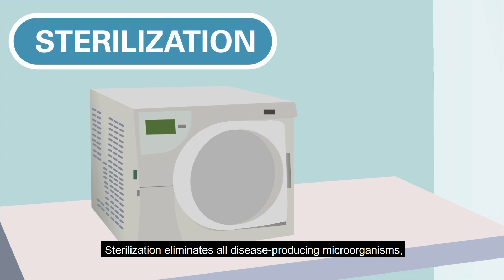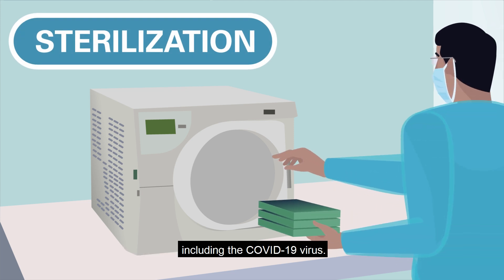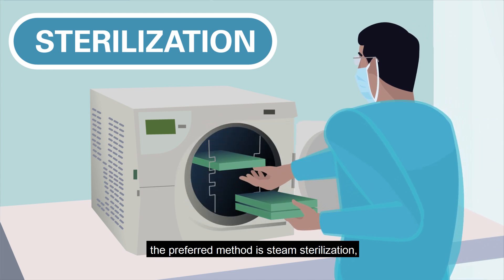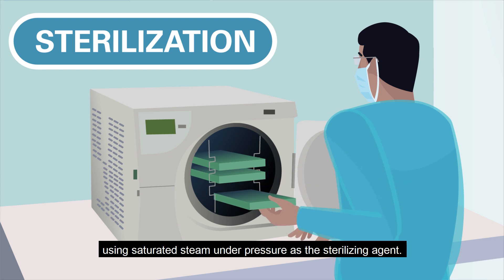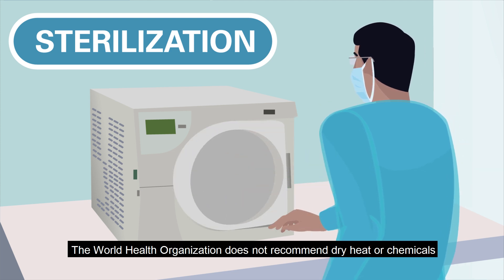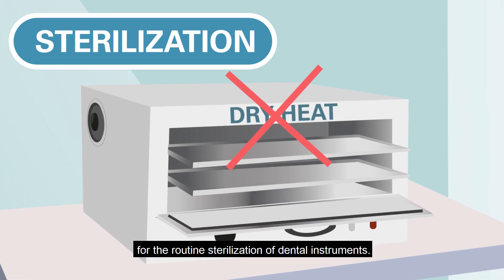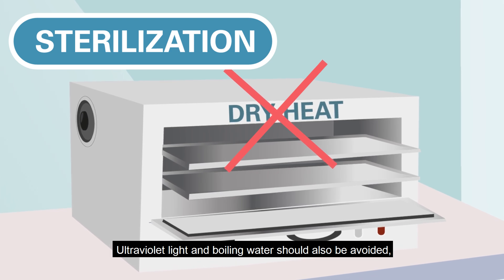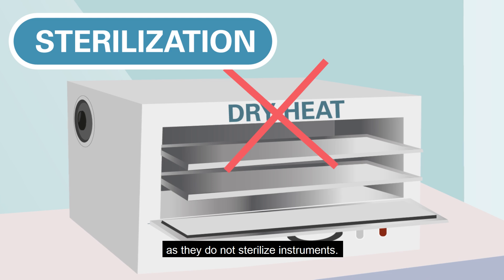Sterilization eliminates all disease-producing microorganisms, including the COVID-19 virus. For dental instruments, the preferred method is steam sterilization, using saturated steam under pressure as a sterilizing agent. The World Health Organization does not recommend dry heat or chemicals for the routine sterilization of dental instruments. Ultraviolet light and boiling water should also be avoided, as they do not sterilize instruments.